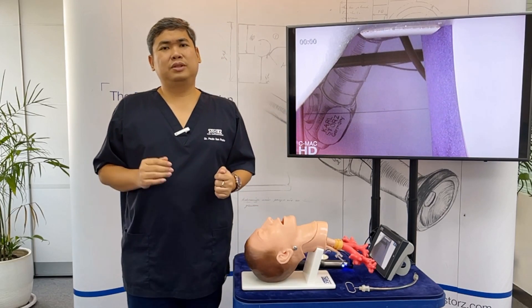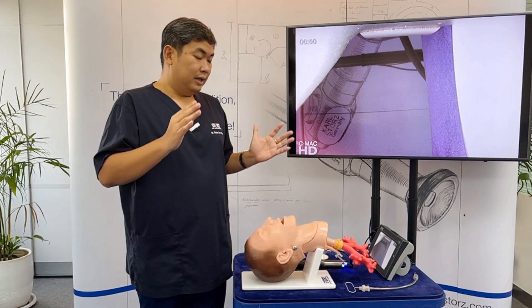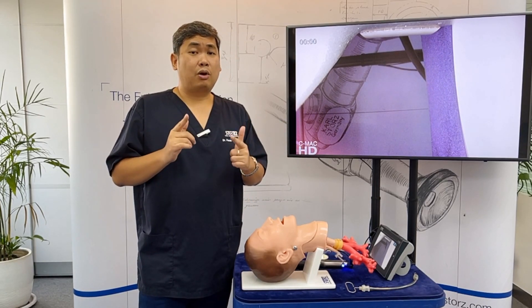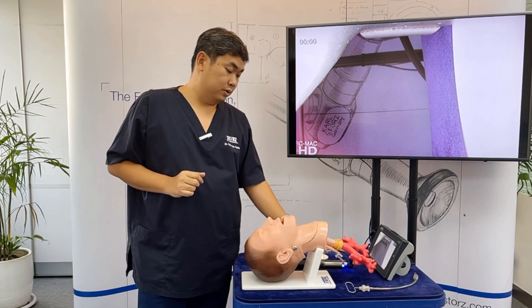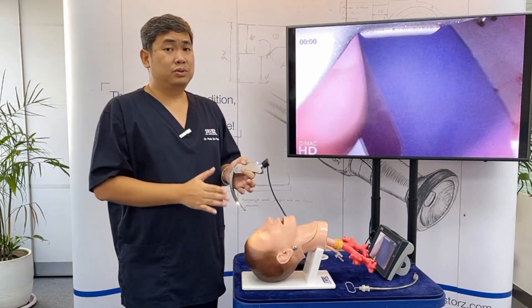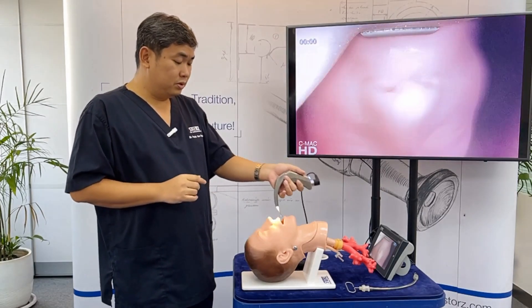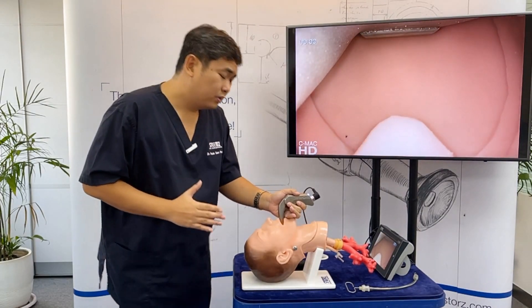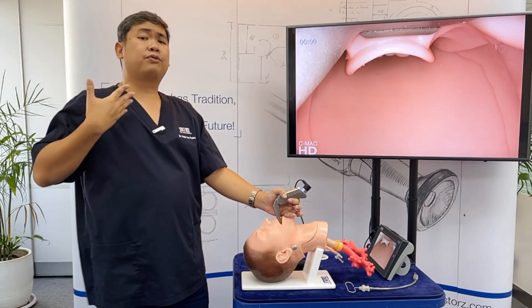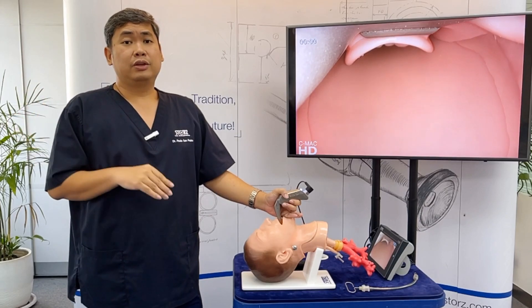Recently, due to the COVID-19 pandemic, it has been shown that video laryngoscopy is also safer for the doctor because it decreases the amount of time the doctor is exposed during intubation. Also, when using video laryngoscopy, you don't have to bend down near the patient — you're farther away, so you're safer.